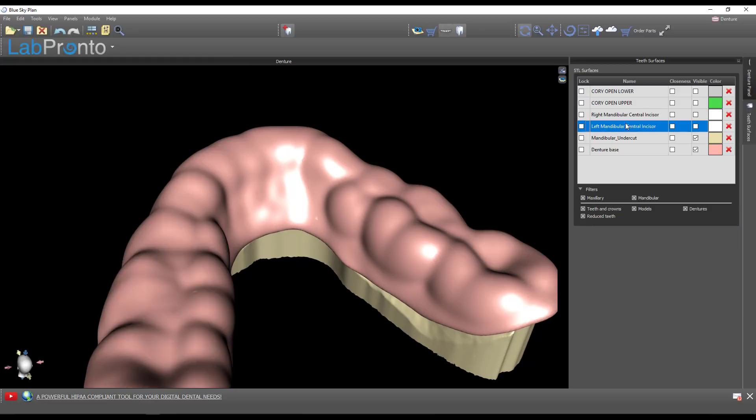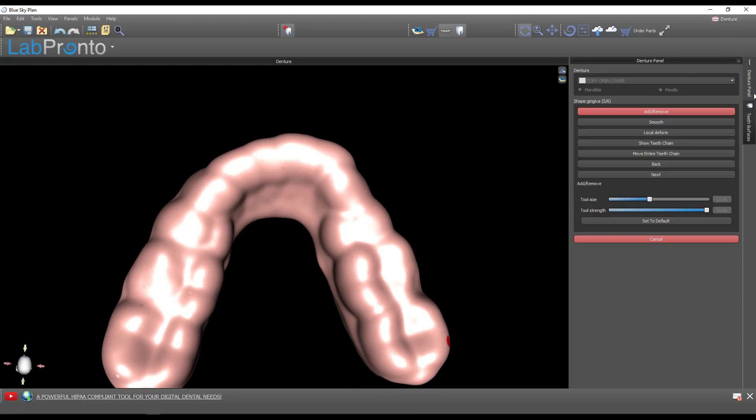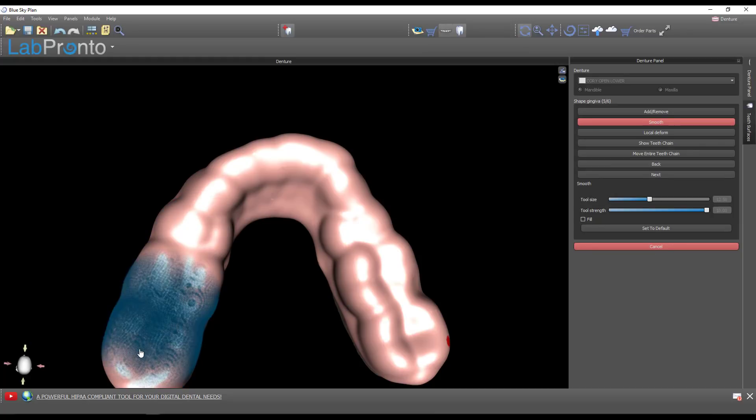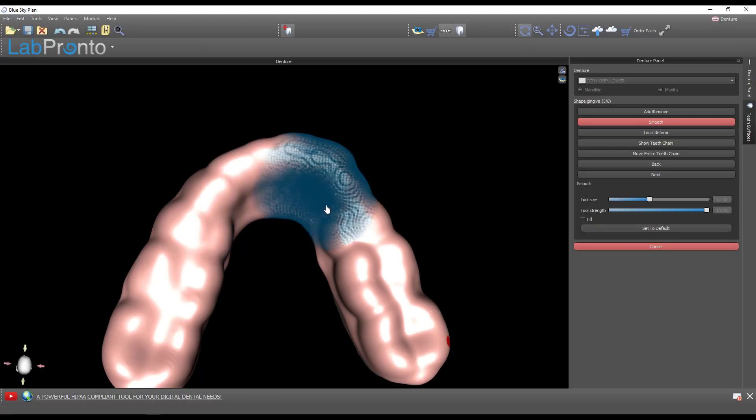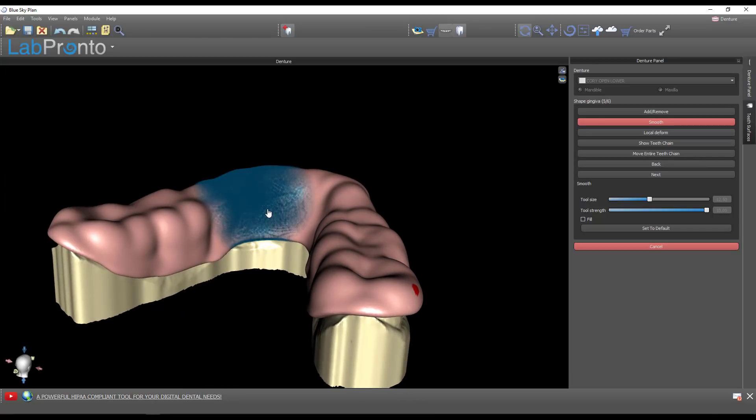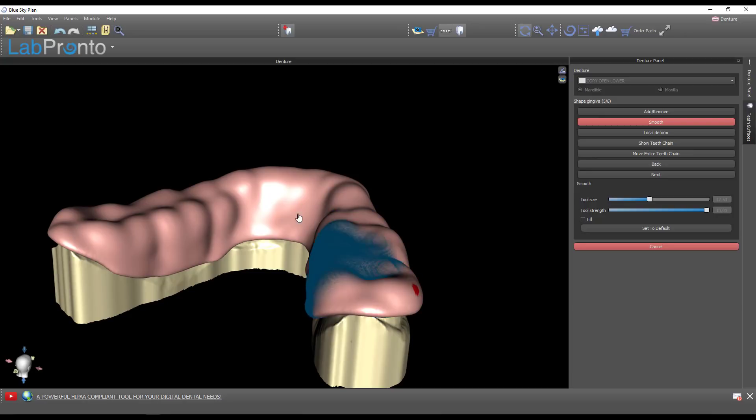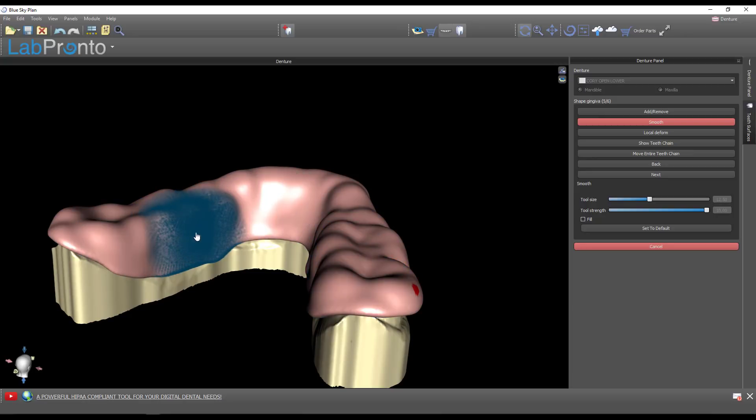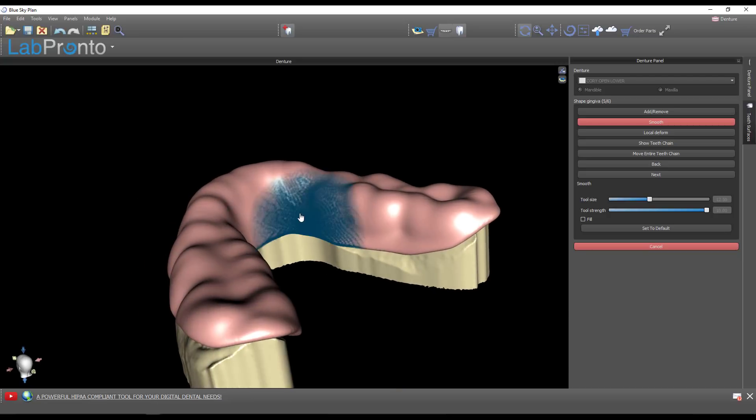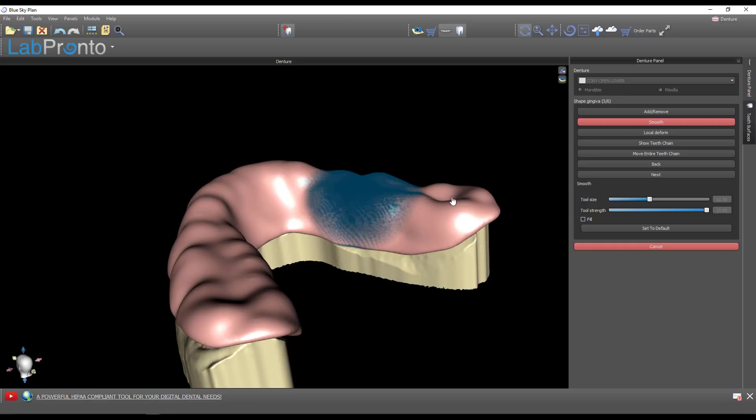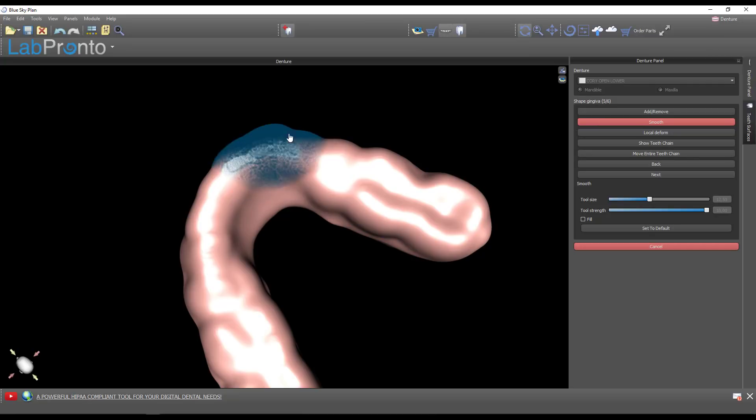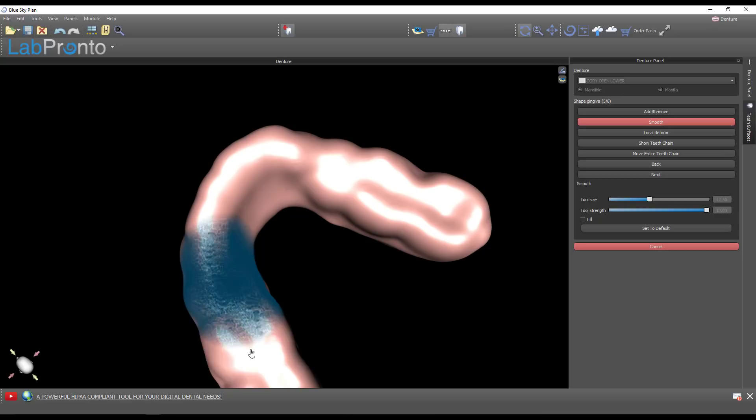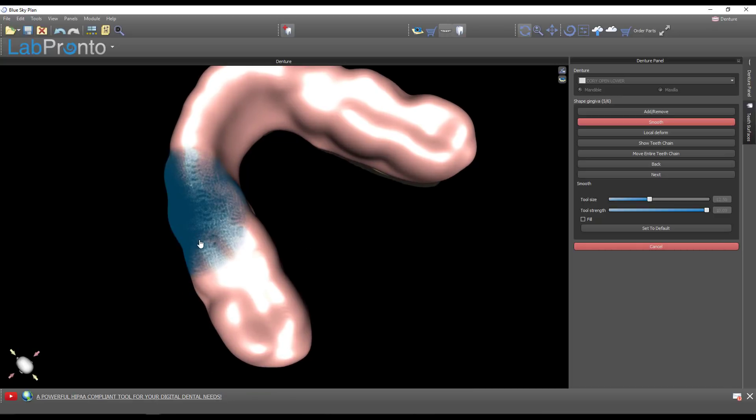Let's hide the maxilla and use our smooth tool. Maximize the strength and give a good smooth surface to this whole thing. Because when it's building that three millimeters of thickness, it's just purely building a uniform three millimeters right over the top of the teeth. This shell will more or less conform to the shape of the teeth. If you want to minimize bulk, especially on the lingual where the tongue is going to be resting, you need to use that smoothing tool.